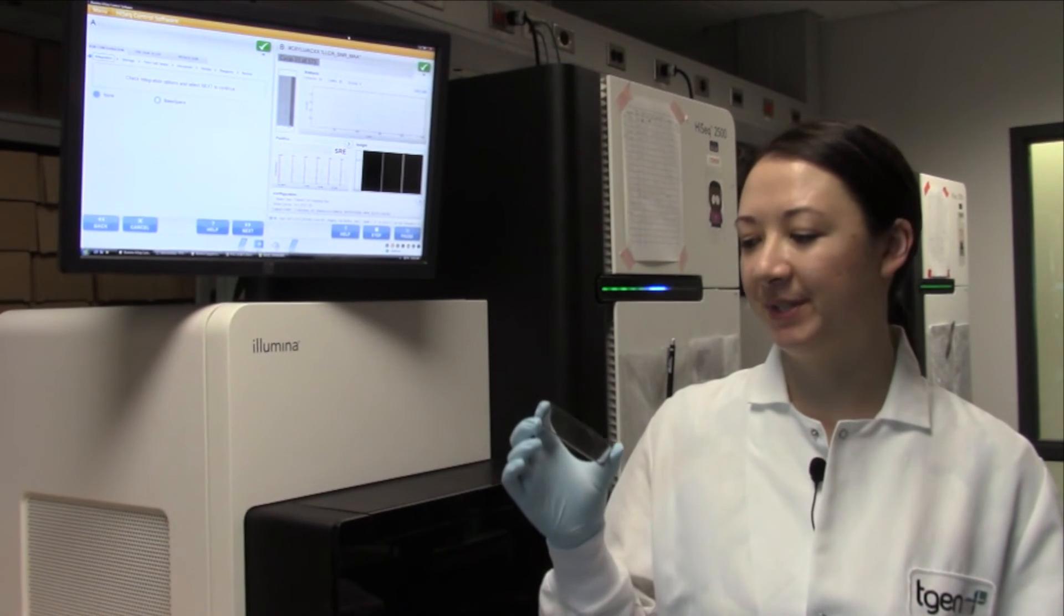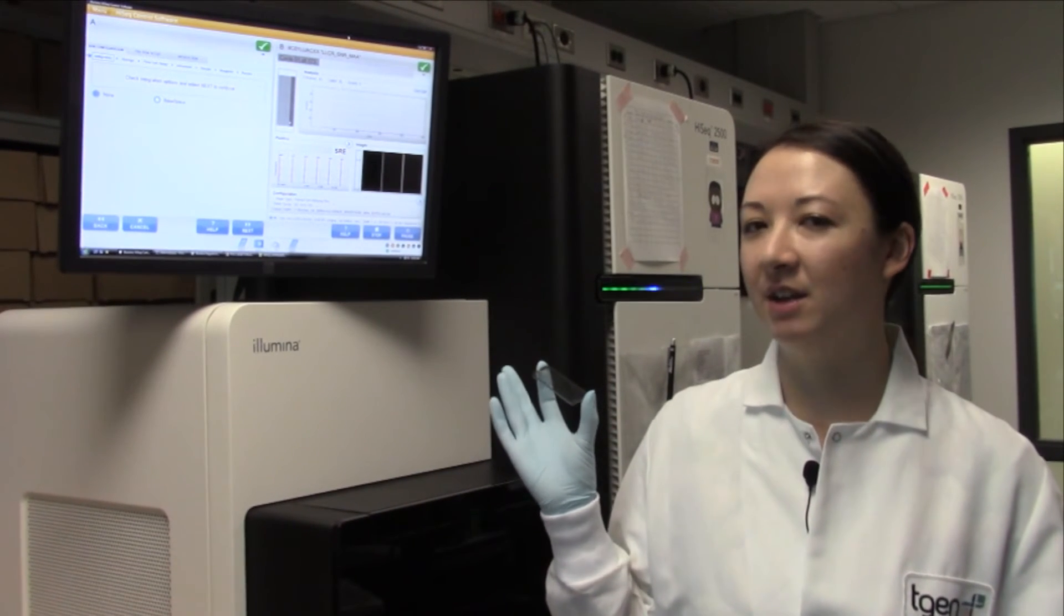Next, we load the flow cell onto this machine to read the sequence of the DNA fragments.